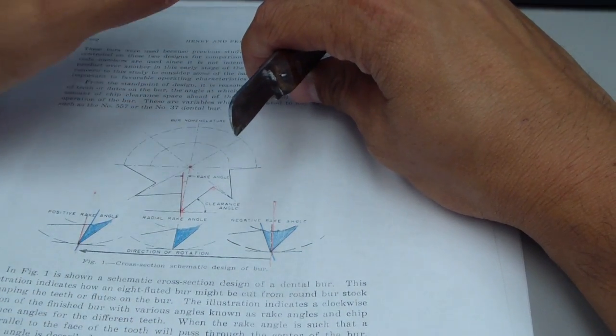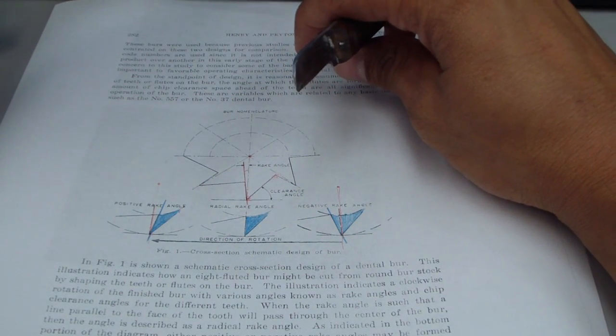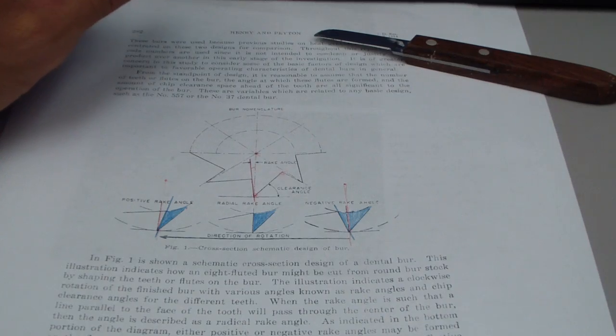So the manufacturers obviously take that into consideration when designing a burr and endo file for a specific use. I hope that helps. Cheers.